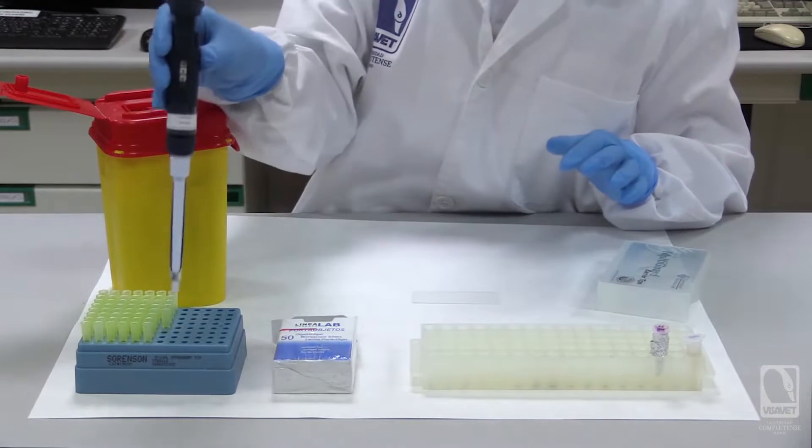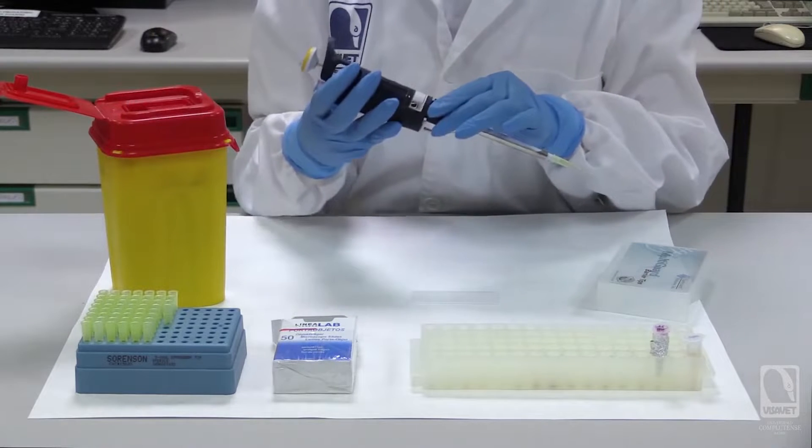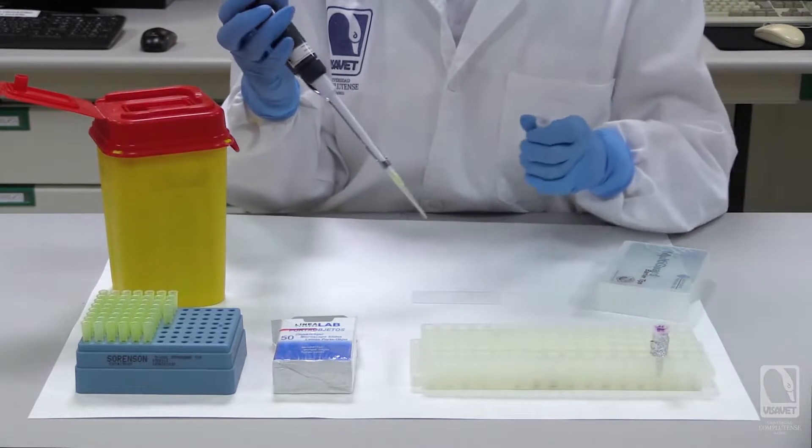To conduct this test, we will begin by taking a slide. Using a micropipette, we will accurately dispense 30 microliters of our test serum.